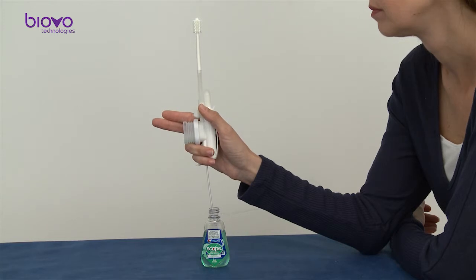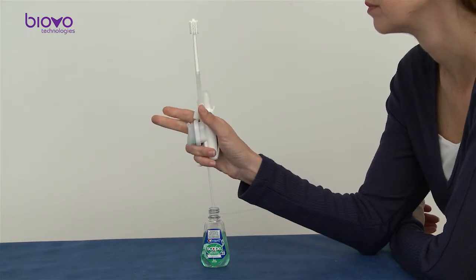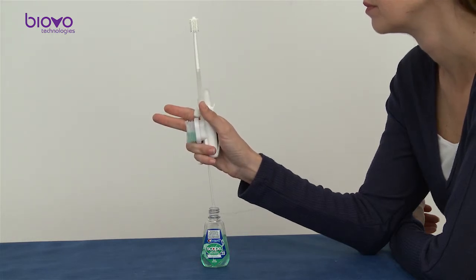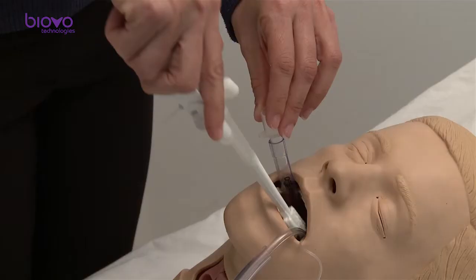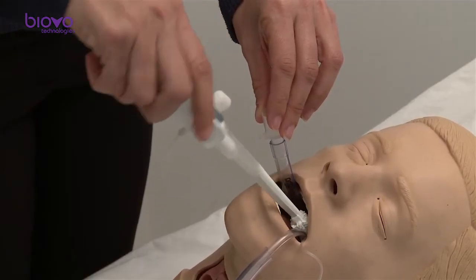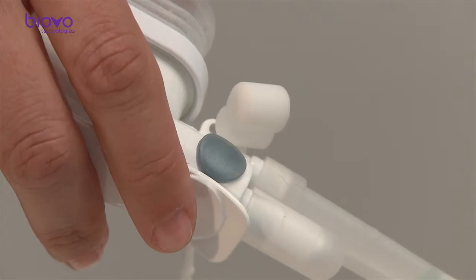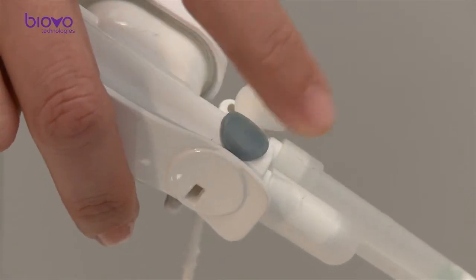Conveniently, load disinfection liquid with one press of the pump from any source of your choice. The 360-degree brush makes easy and comfortable brushing of any point in the mouth. To improve brushing efficacy, turn on the power brush.